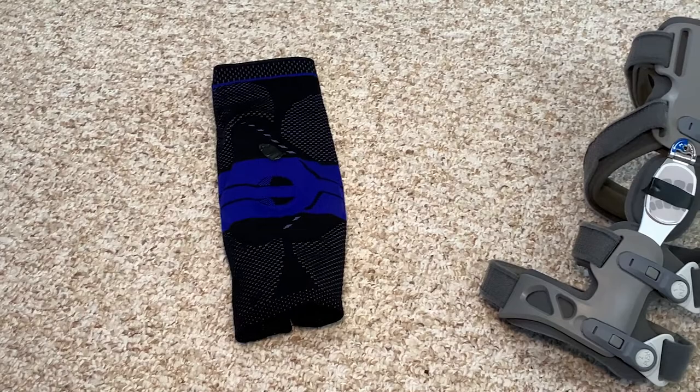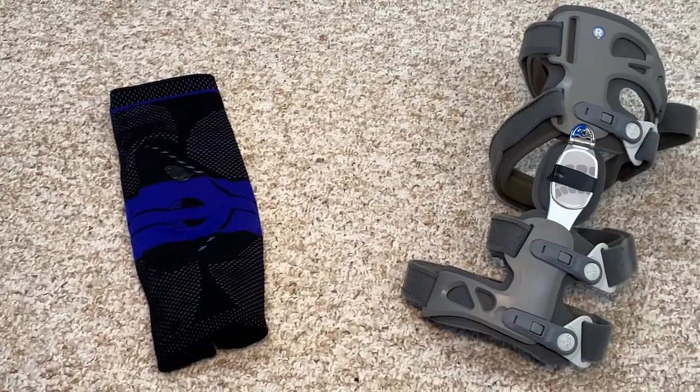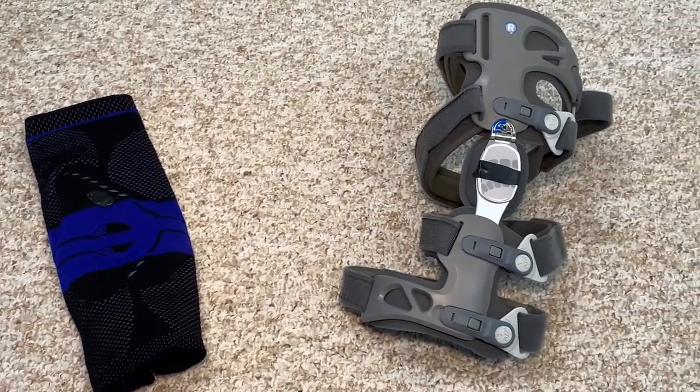Both of them are really great options with good designs. Depending on the outcomes of your chronic knee pain and what's causing it, you want to lean toward whichever one is going to give you the best relief. Both of these designs are among the most streamlined options out there without getting too bulky, and will help you best choose the right option for you.